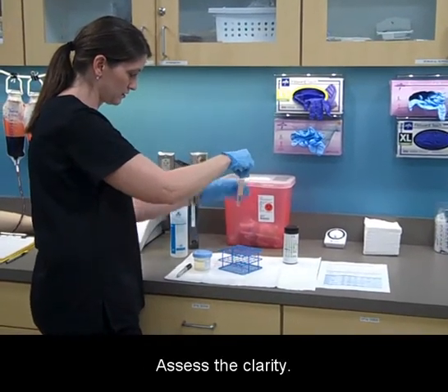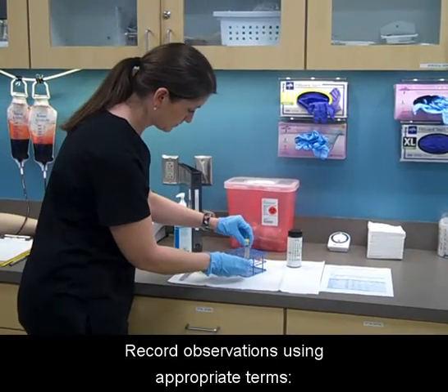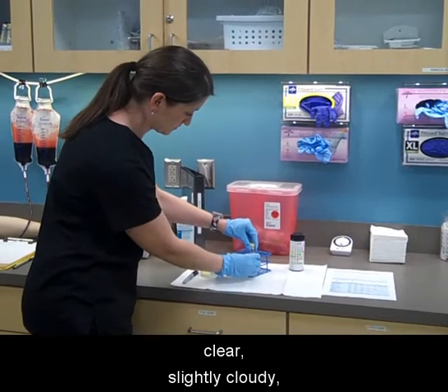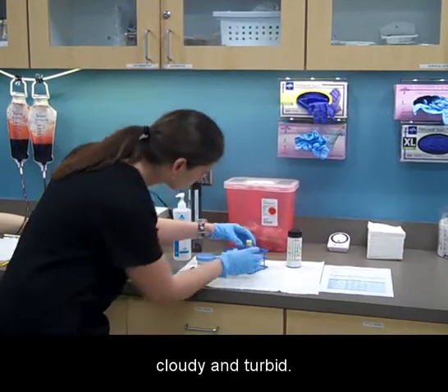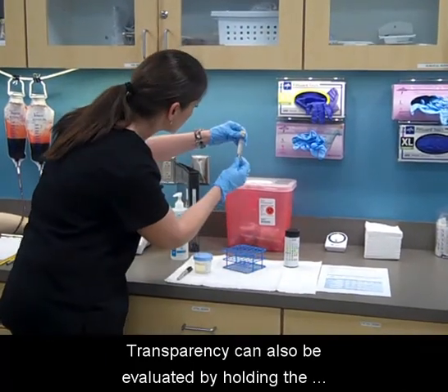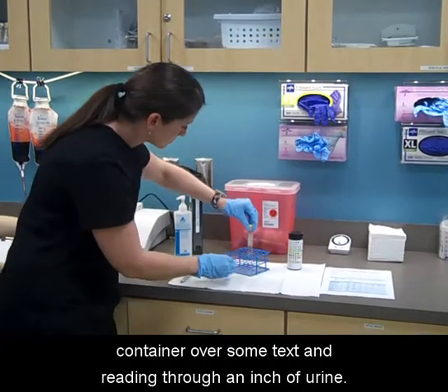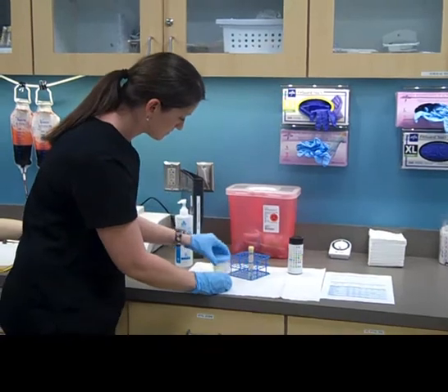Assess the clarity and record observations using appropriate terms: clear, slightly cloudy, cloudy, and turbid. Transparency can also be evaluated by holding the container over some text and reading through an inch of urine.